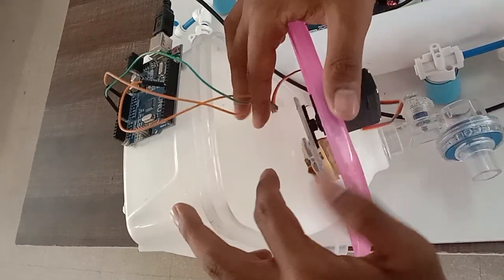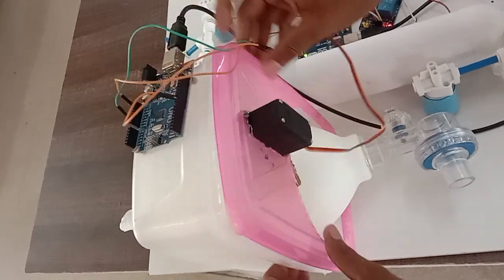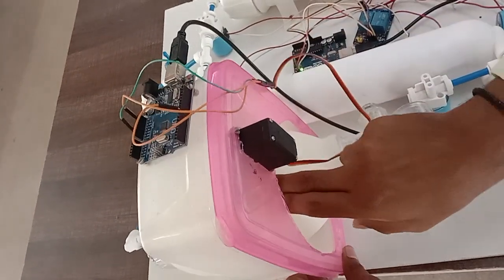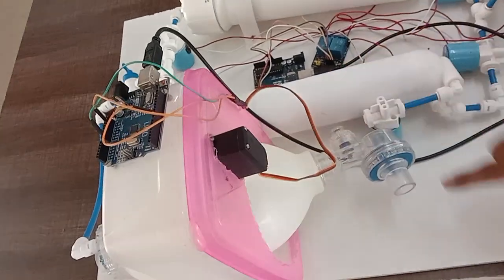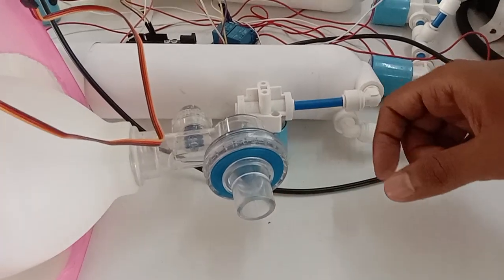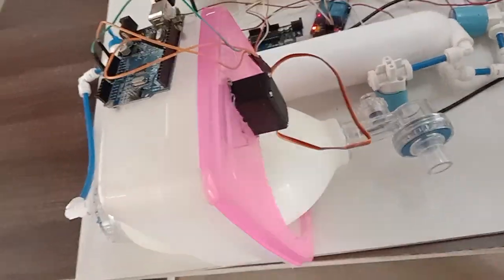This camshaft is used to press the Ambu bag. This mechanism will press the Ambu bag and here we will get the air, mixture of air and oxygen. From this, we can connect it to a pipe and give it to the patient. So, this will be pressed by this Arduino line.